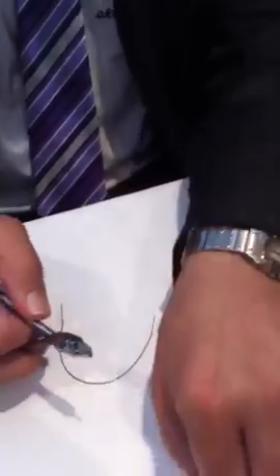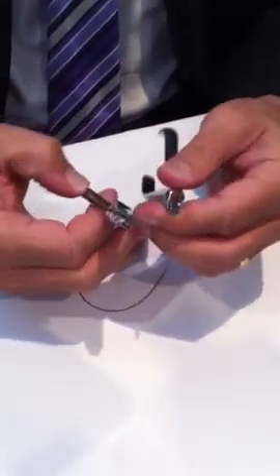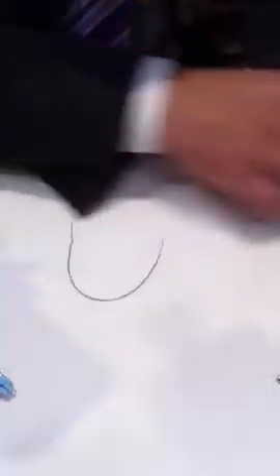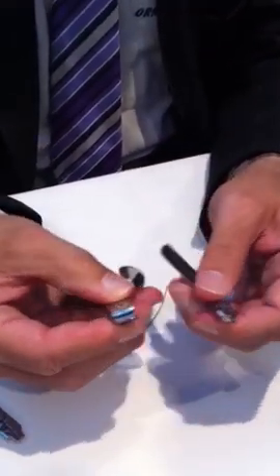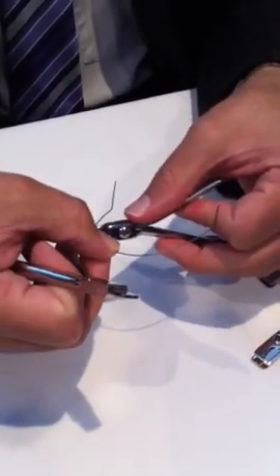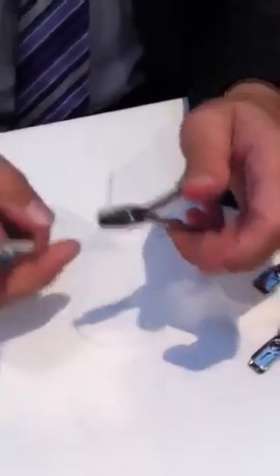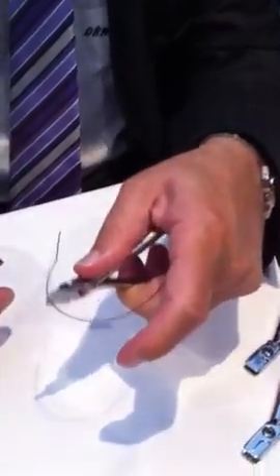The best pliers to put the torque in are the Tweed torquing pliers. This is not exactly a matching set of Tweed torquing pliers but will do for the purpose of demonstration. Some people call this a ribbon arch plier or a flat-on-flat, but these are the best pliers to grip the wire. One wire, one plier effectively grabs the wire so you don't put in unwanted torque.